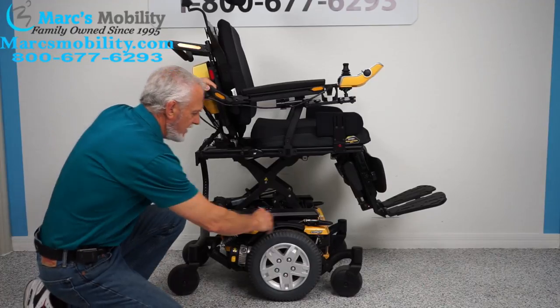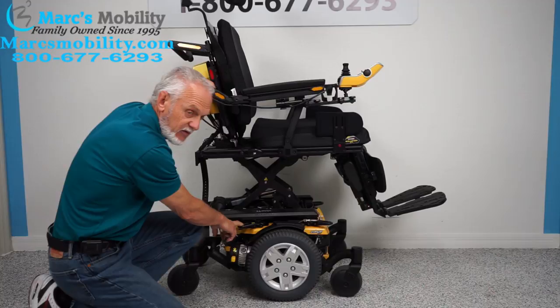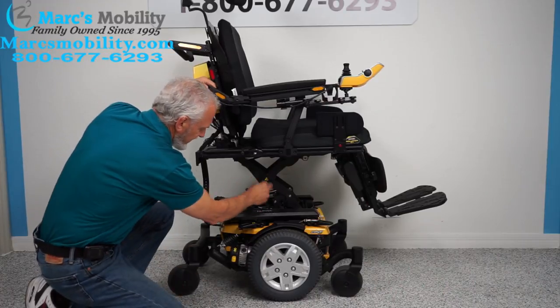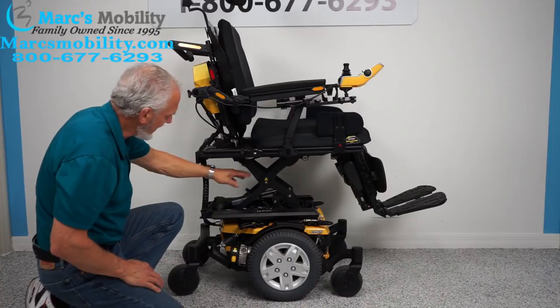This is your anchor point here and here — this is where you would secure your chair to your lift or your van if you're going to transport this chair. There's two on this side, two on the opposite side. You can see the armature for the seat lift right here, and you can see the actuator right here that makes the seat go up and down.